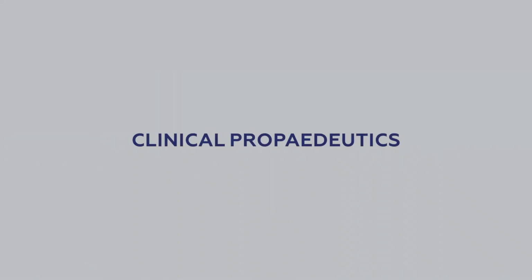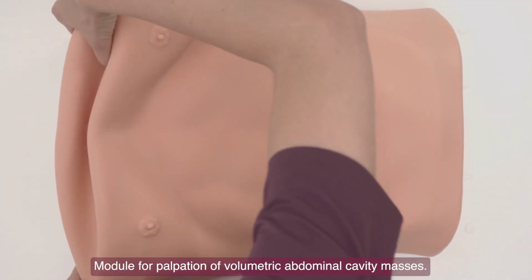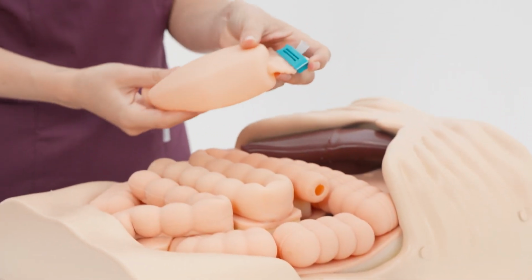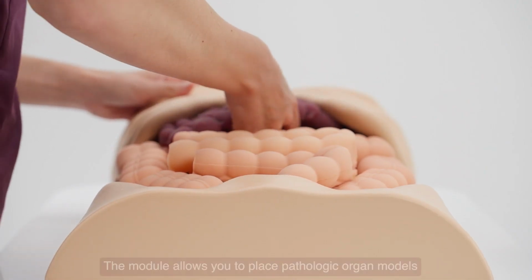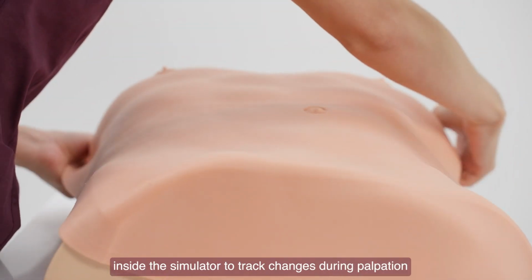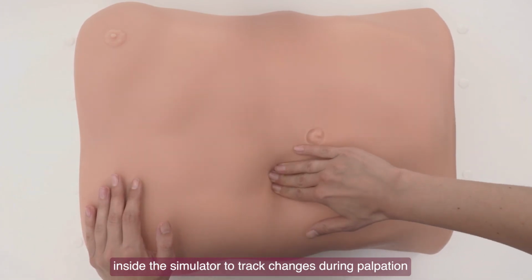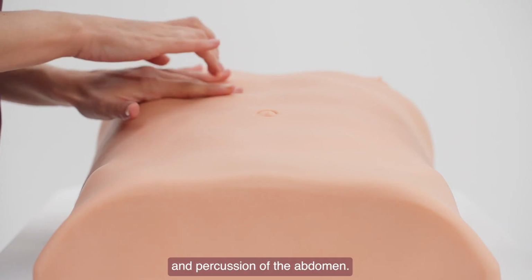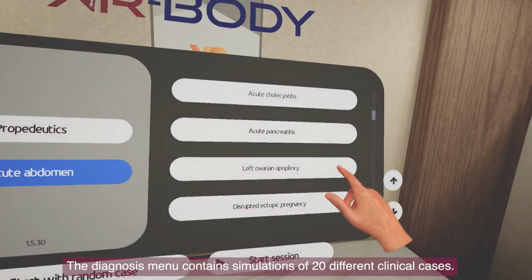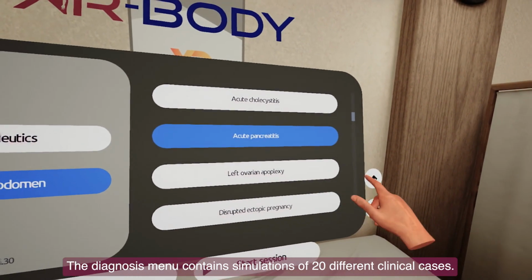Clinical propaedeutics. Module for palpation of volumetric abdominal cavity masses. The module allows you to place pathologic organ models inside the simulator to track changes during palpation and percussion of the abdomen. The diagnosis menu contains simulations of 20 different clinical cases.